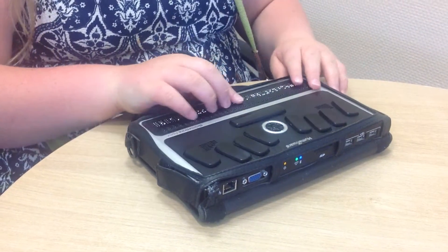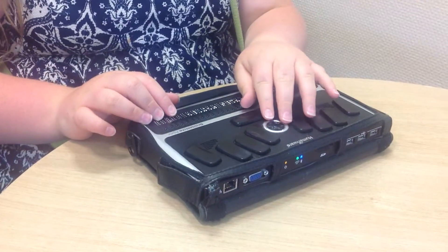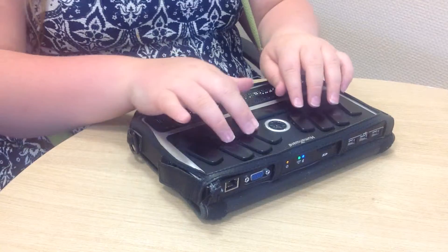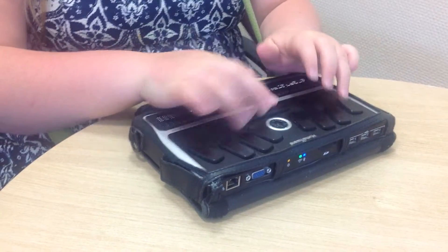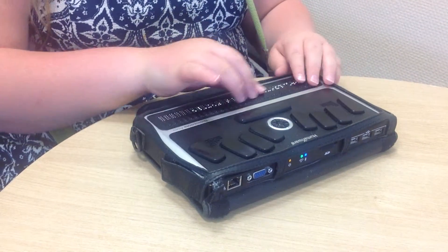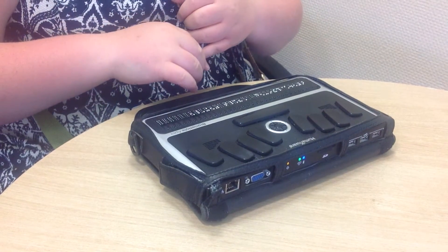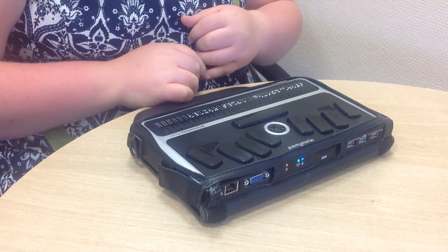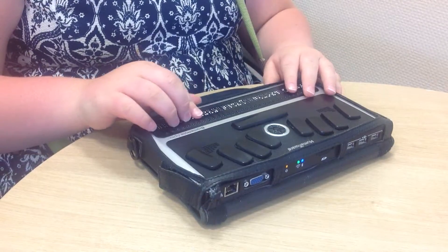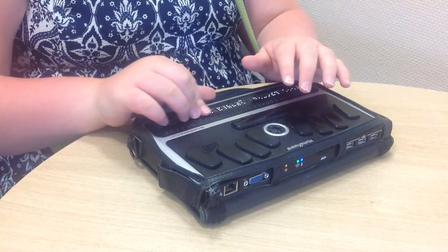You press the very bottom of the scroll wheel to navigate. I want to change mine — I'll press F... oh sorry, that's elderly male.